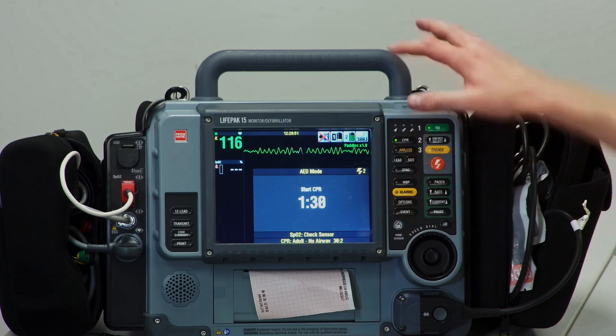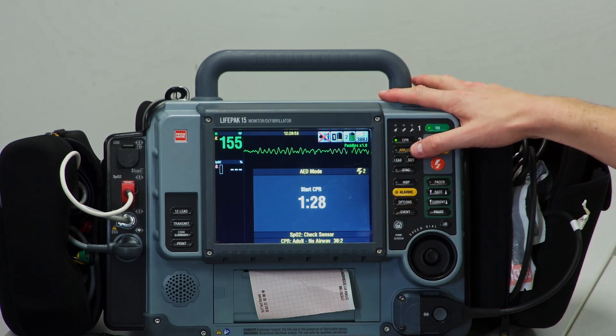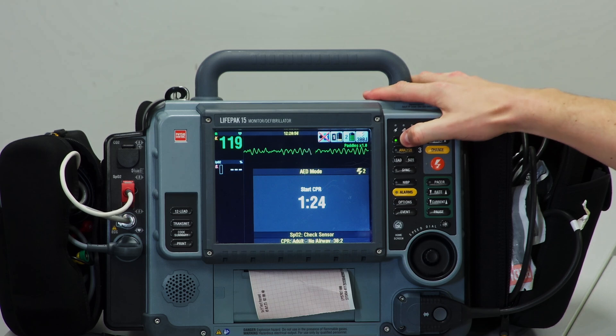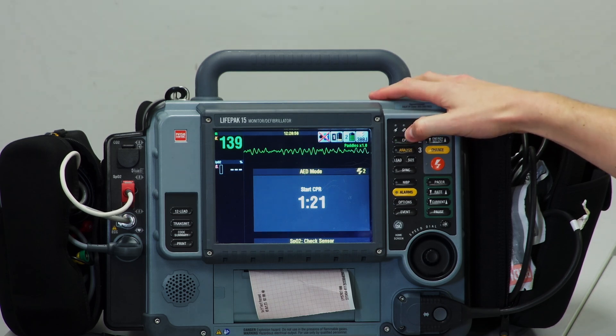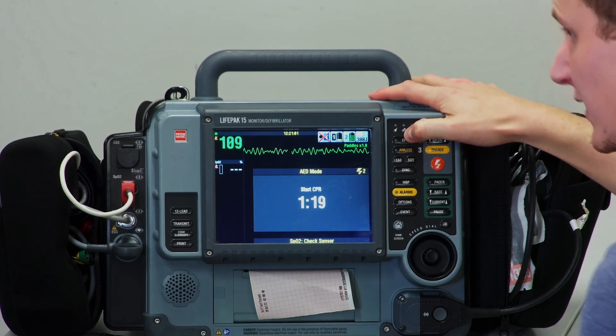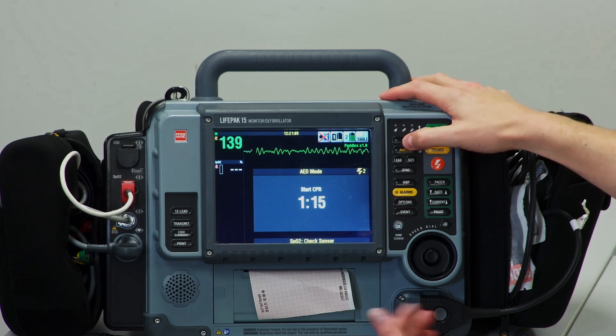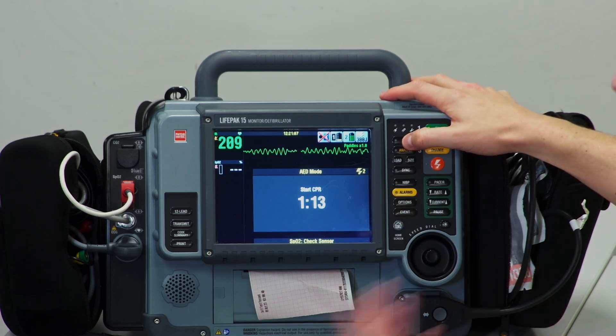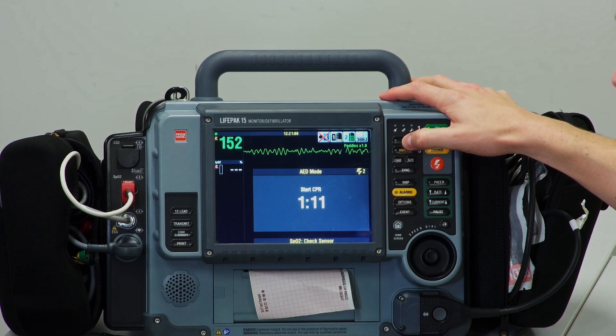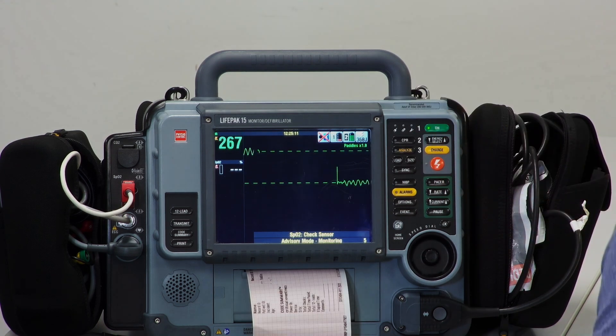I'm going to just turn off the metronome—you can just hit the CPR button—just because it's difficult to talk, but a metronome is a good idea. Sometimes it can be a bit challenging if you have it on. You see how it was clicking and going 30 to 2? So it was going 30 compressions and then two ventilations.